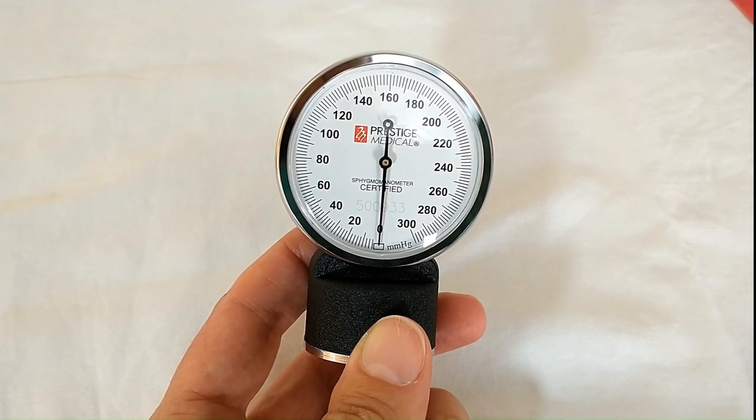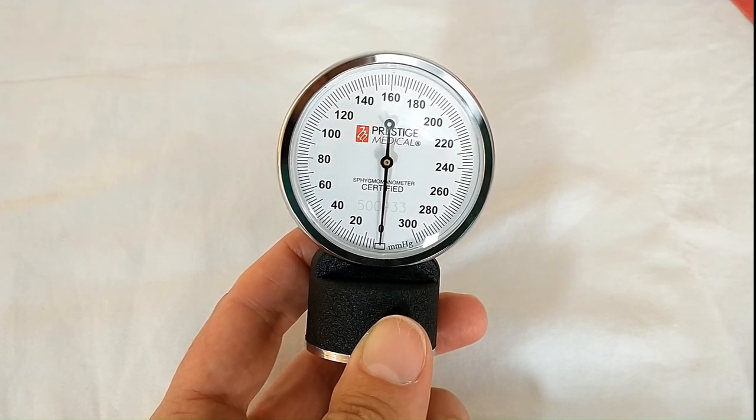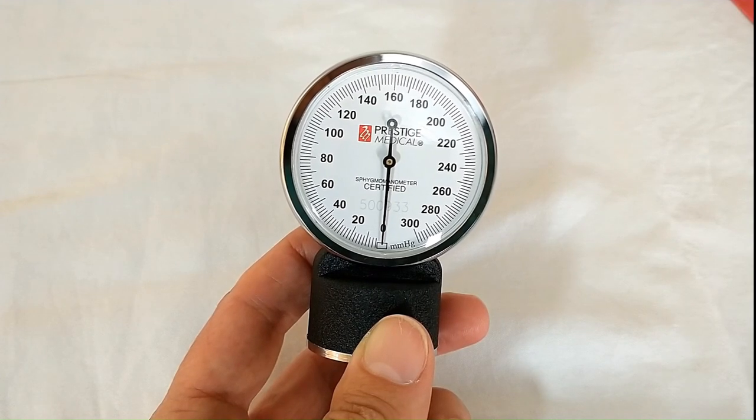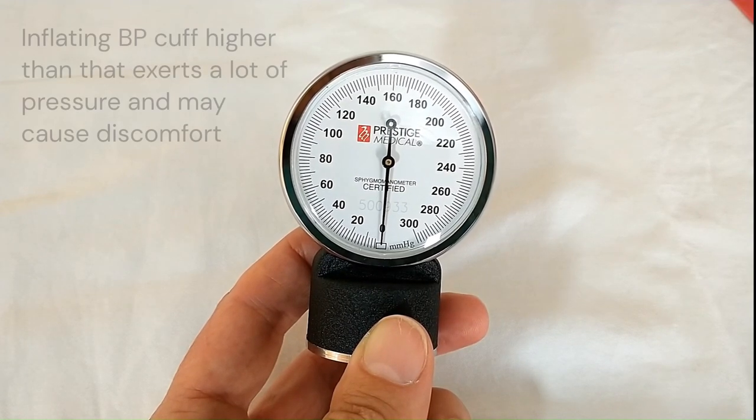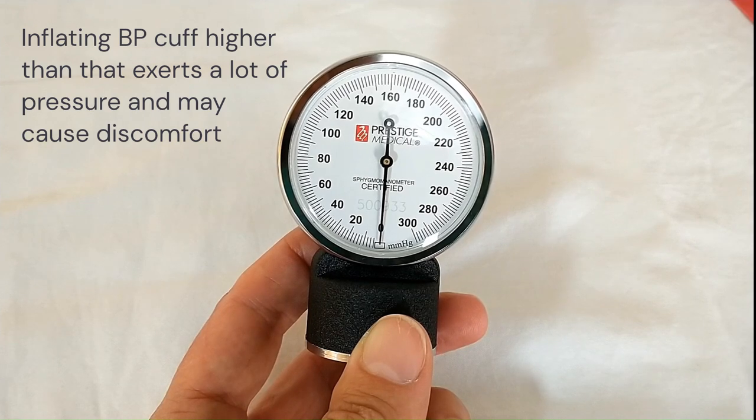There is no reason to inflate the blood pressure cuff to higher than that because it exerts a lot of pressure on the patient's arm and actually causes some discomfort.